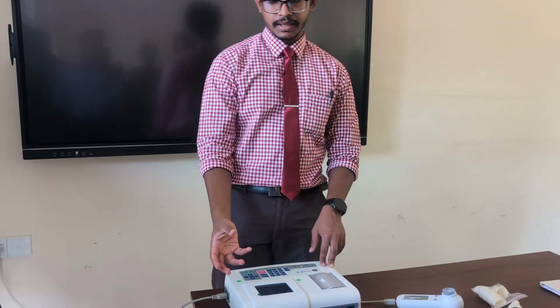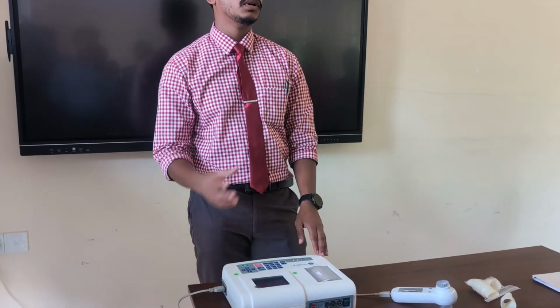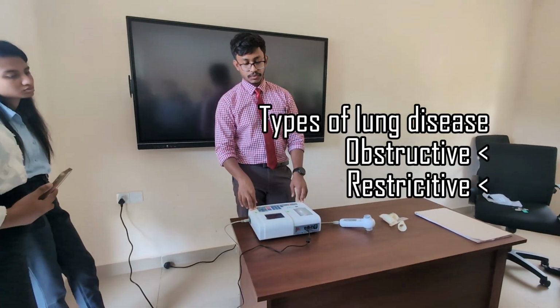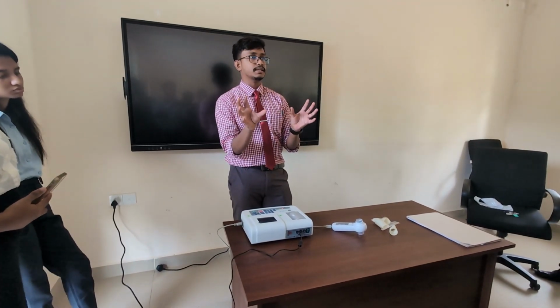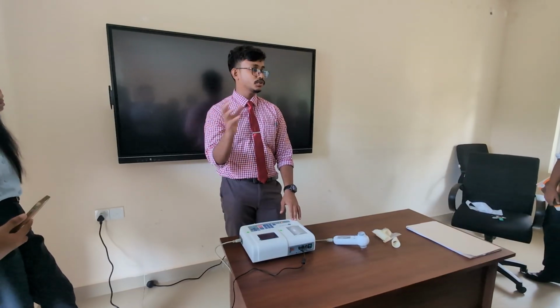So apart from that, there is also another use from this machine. What is that? So there are lung diseases, right? So what are the two main types of lung diseases? Obstructive and restrictive. Yeah. So why do we need this too? How do they relate to each other? So what does the type of lung disease have to do with spirometer? So why do we need this for those two diseases?